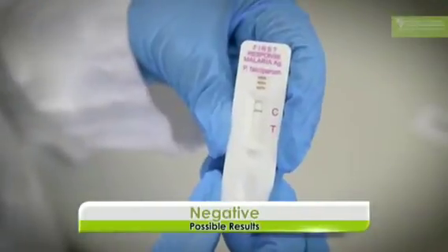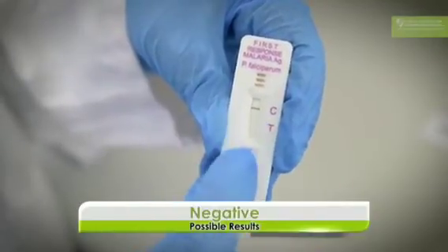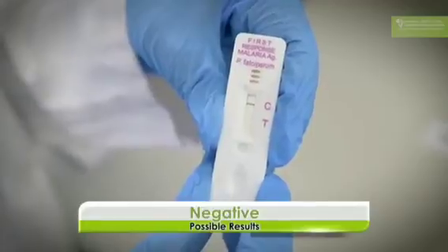So this is a negative result because the only thing that has come up is a control line. There is nothing around the test window line, so this is a negative test.